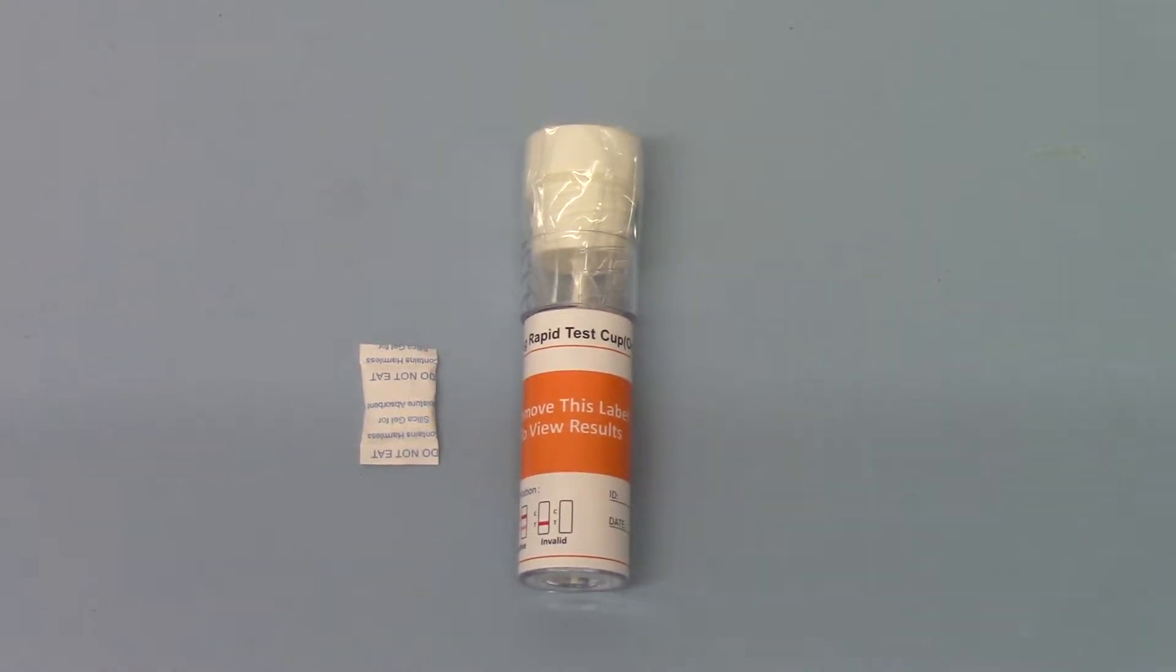Okay, welcome back to part two. Here we are demonstrating the contents that is in a foil of the DSD-877, six drug plus alcohol.